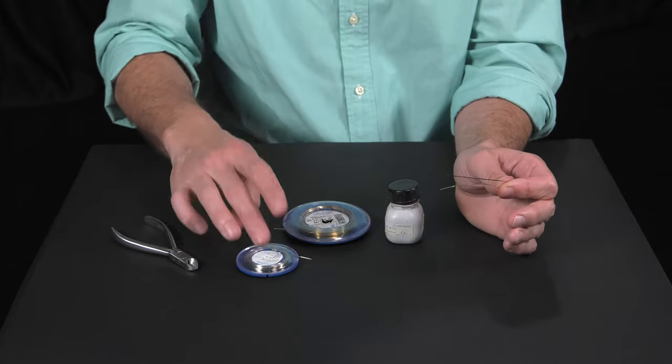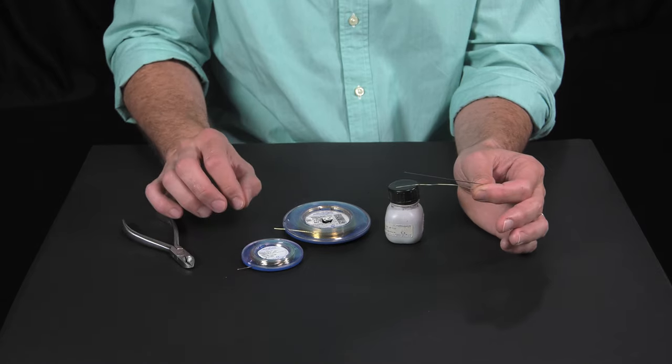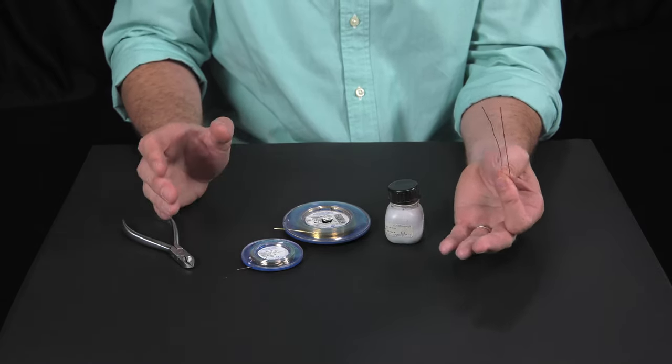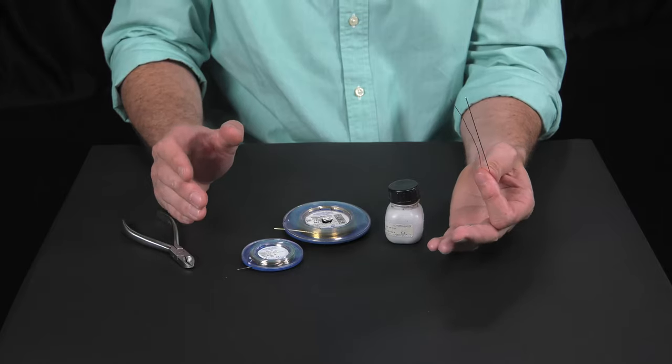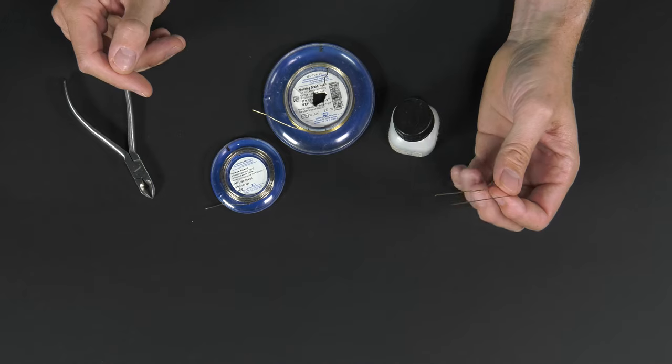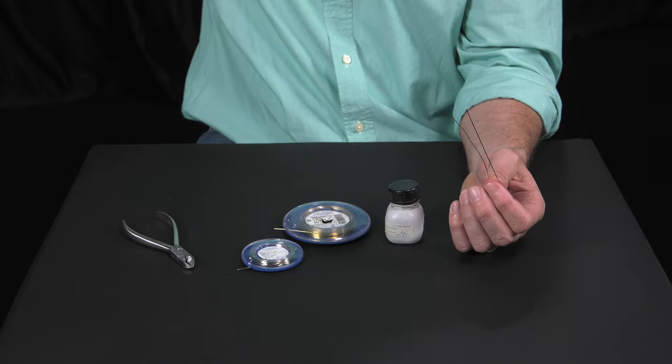We are going to see how to solder ganchos in the archwire. In our MBT technique, it is very important to know how to solder ganchos in the archwire, because all the archwires have soldered ganchos in the distal of the incisive laterals, either in the upper or lower.